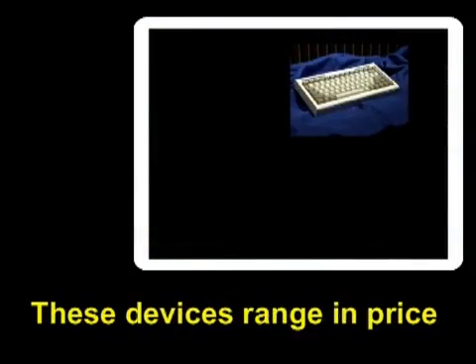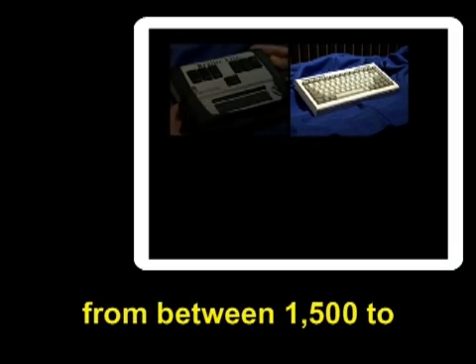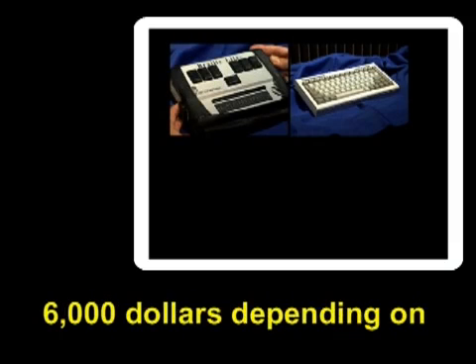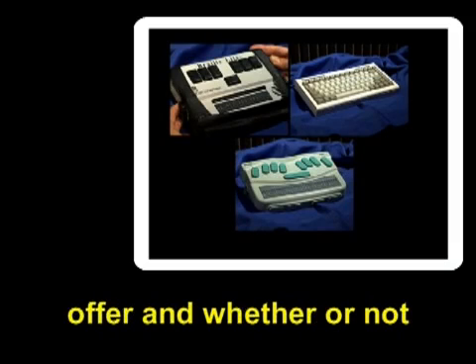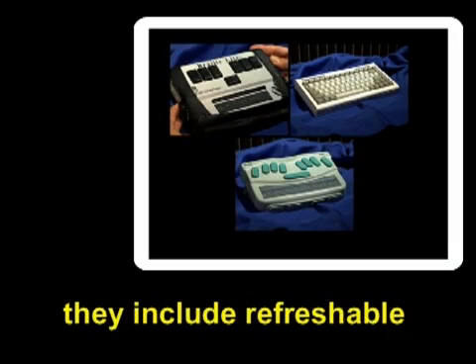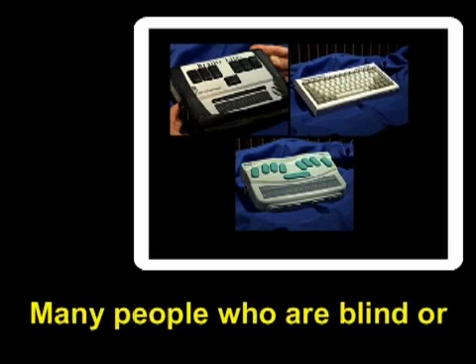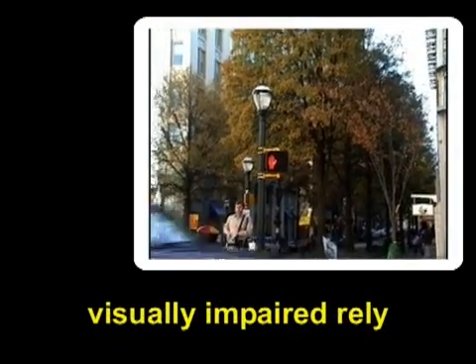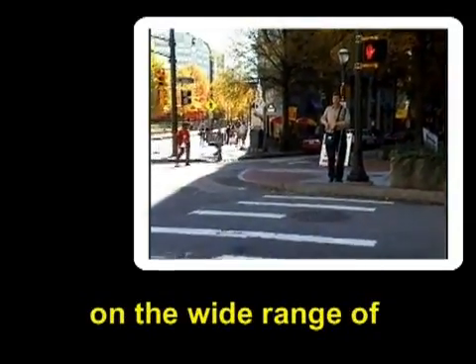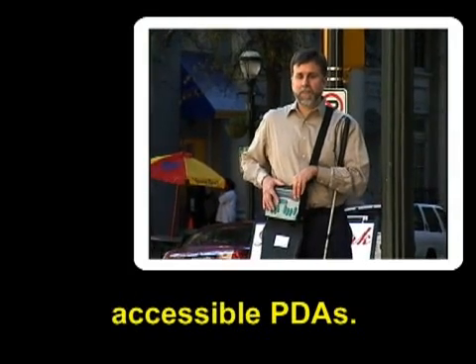These devices range in price from between $1,500 to $6,000, depending on what features the models offer and whether or not they include refreshable braille displays. Many people who are blind or visually impaired rely on the wide range of capabilities offered by accessible PDAs.